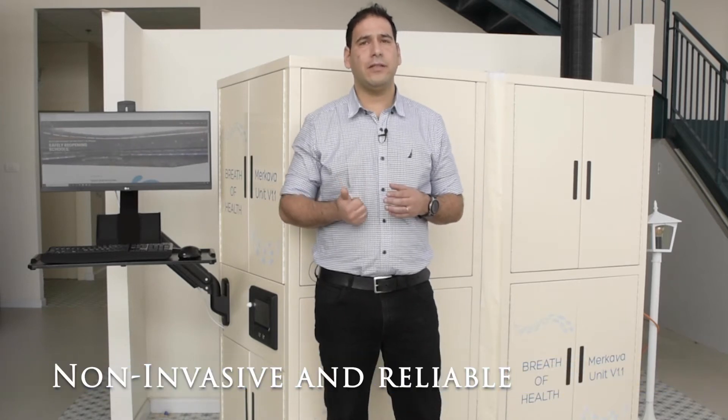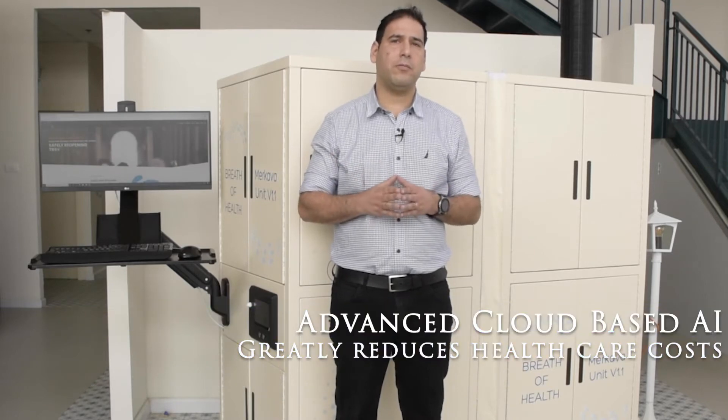We are non-invasive and reliable, we reduce healthcare costs and provide full cloud-based control.